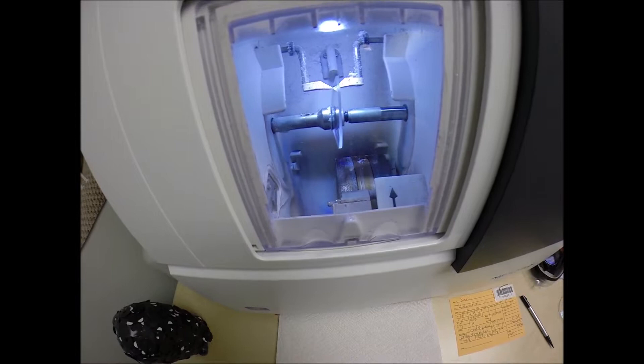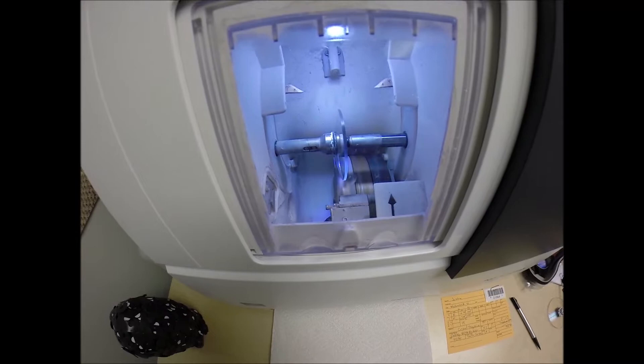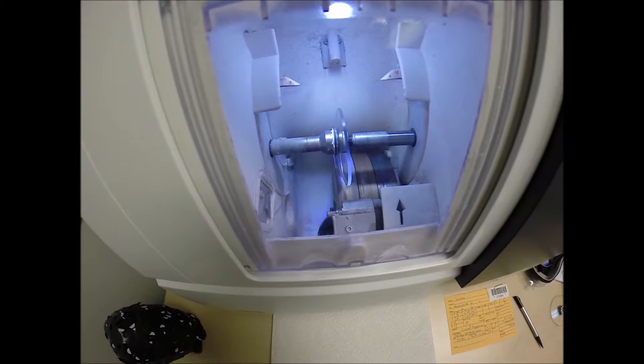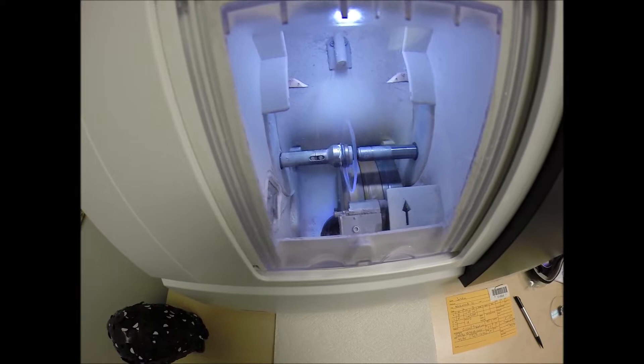And you can see as it's going around tracing the shape of the right lens. It's measuring the thickness of the lens at every point to know exactly, precisely where to place the bevel for the least amount of edge thickness showing. The light flickering in the background is water there to catch the optical sawdust. Polycarbonate lenses cut dry.